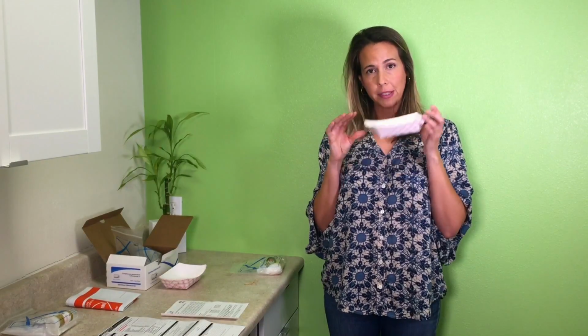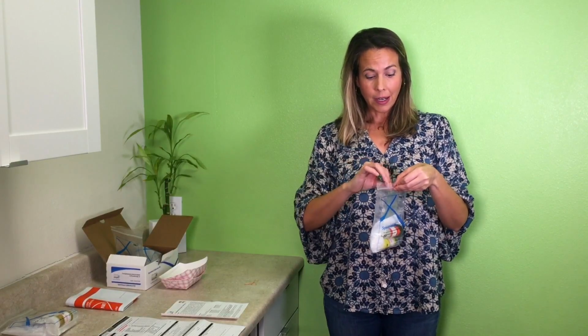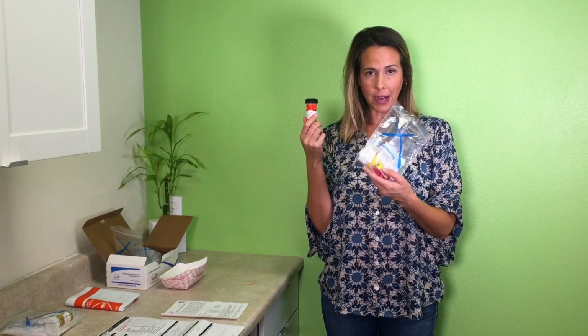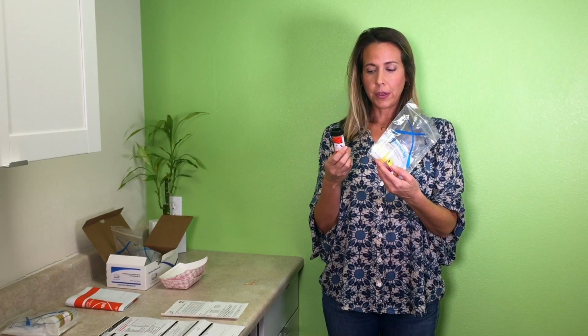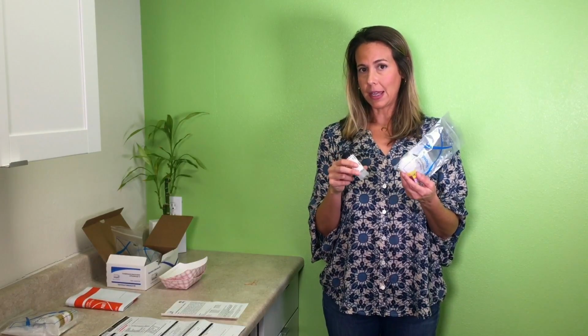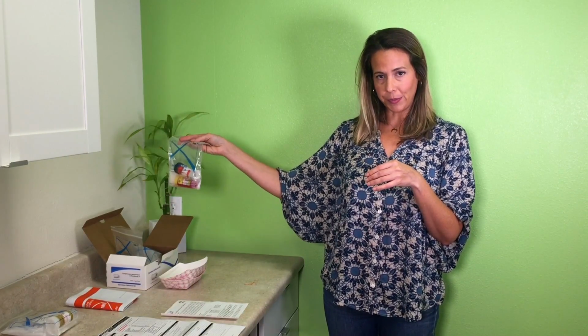Day 3 comes along, time for your third sample. You're going to collect your specimen in the container provided. Take your day 3 Ziploc. There are 2 vials in the day 3 Ziploc, and they're both collected exactly in the same way, and they're both shaken for 30 seconds and put back in the box, right? So you have a black vial in the day 3 and a yellow vial in the day 3. You're going to fill them up with stool just like you did the other vials, shake both of them vigorously for 30 seconds, and they both go back into the Ziploc, back into the box, also at room temp. Again, just another reminder, every single vial is labeled with your name, date of collection, date of birth, okay?